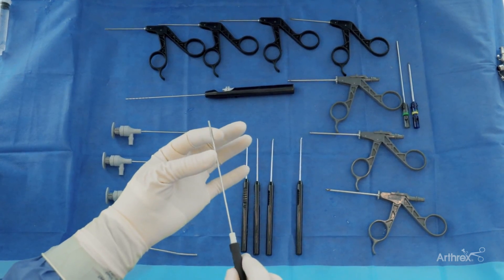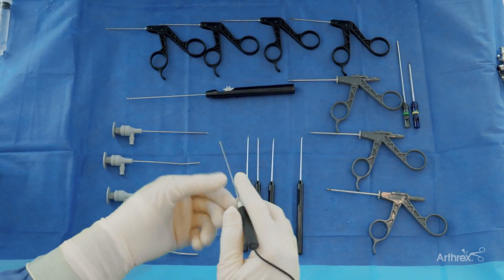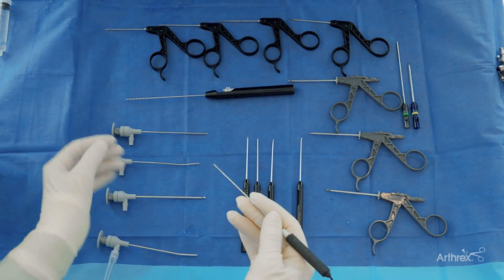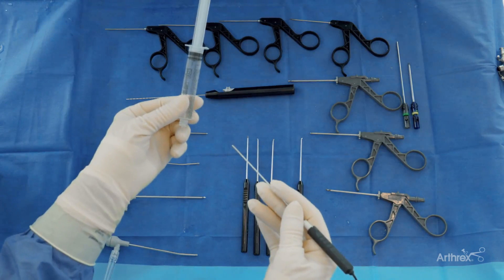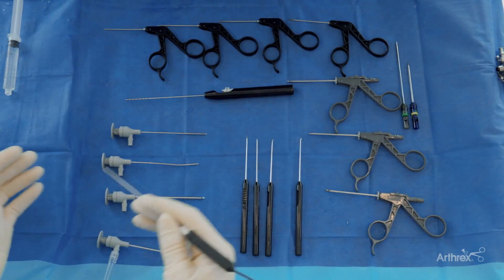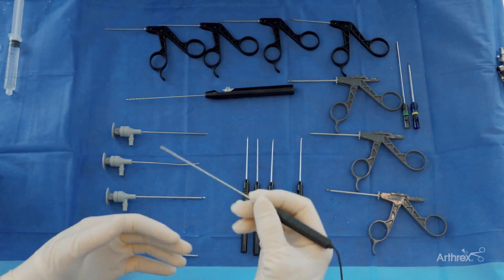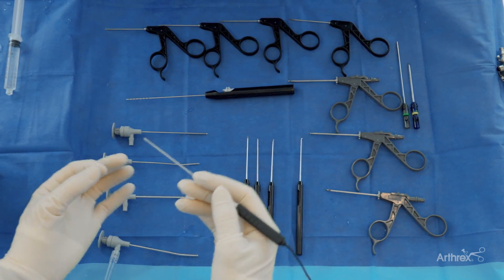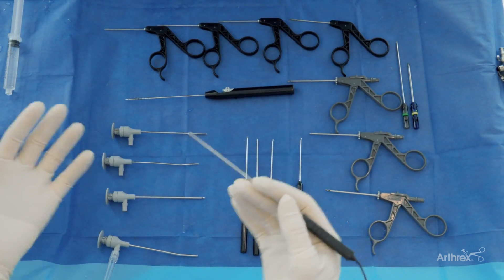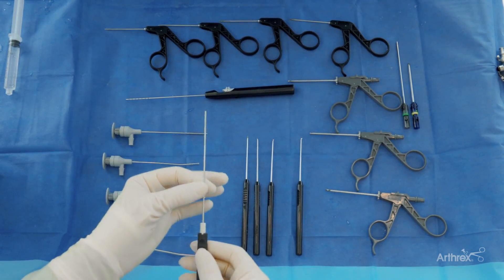This is also a little bit flexible, and it's tiny — really like a needle. There are people that do this in the office, and if you do, you hook up a little bit of fluid and you can do diagnostic arthroscopy. Just a quick tangent: what would you rather do? Pay for a small kit in the office and see an osteochondral defect, or spend a thousand dollars on an MRI? That's just a side note to get you thinking about the possibilities.